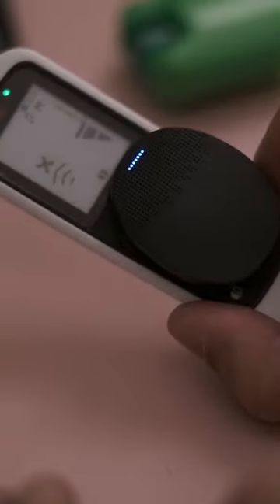The most important function of your FineTuner Echo is that you can use it as your Rondo 3 tester. As I snap my finger, the remote control's indicator light flickers in sync to the sound.